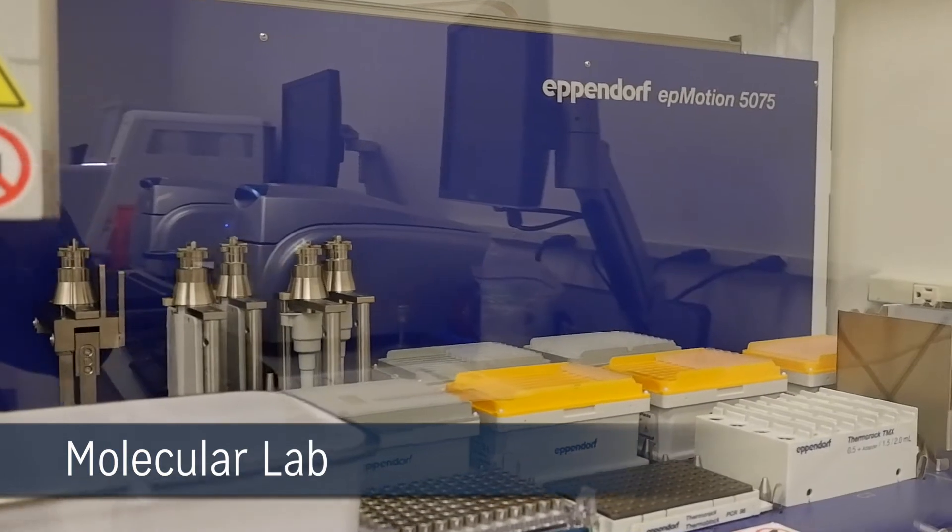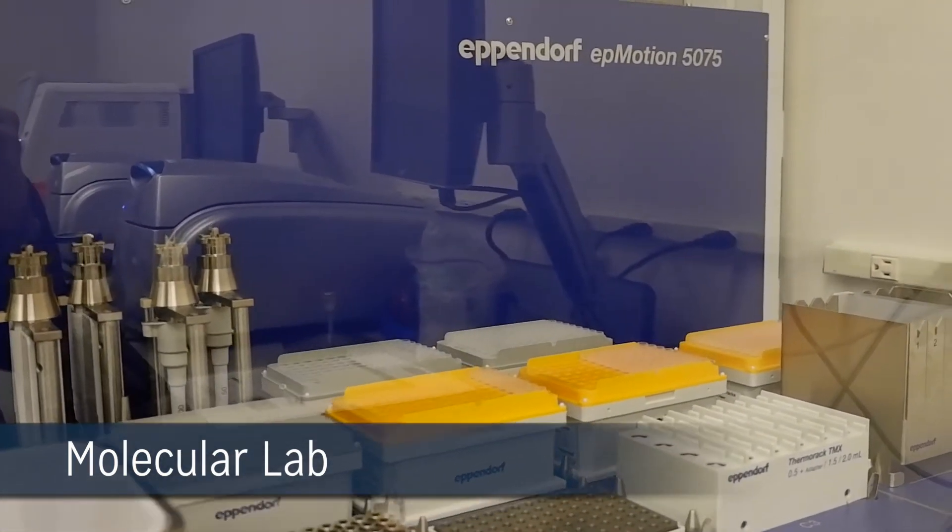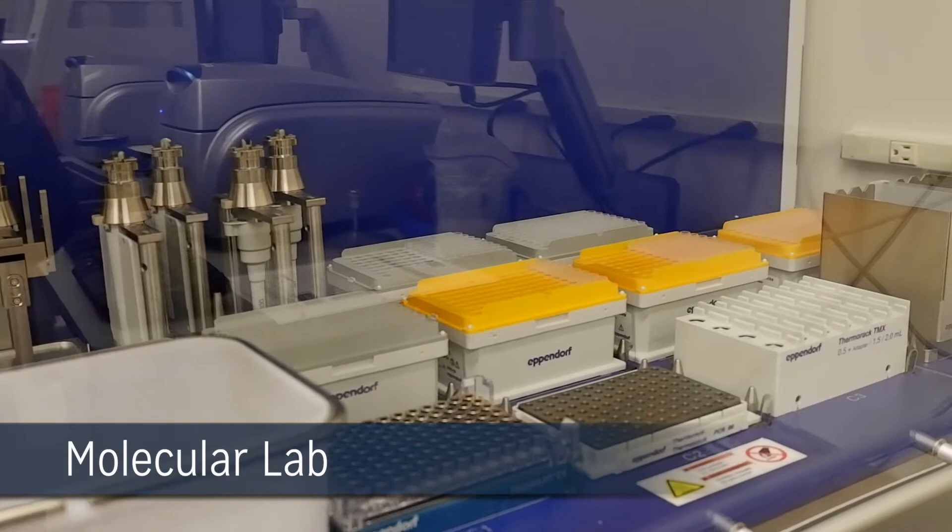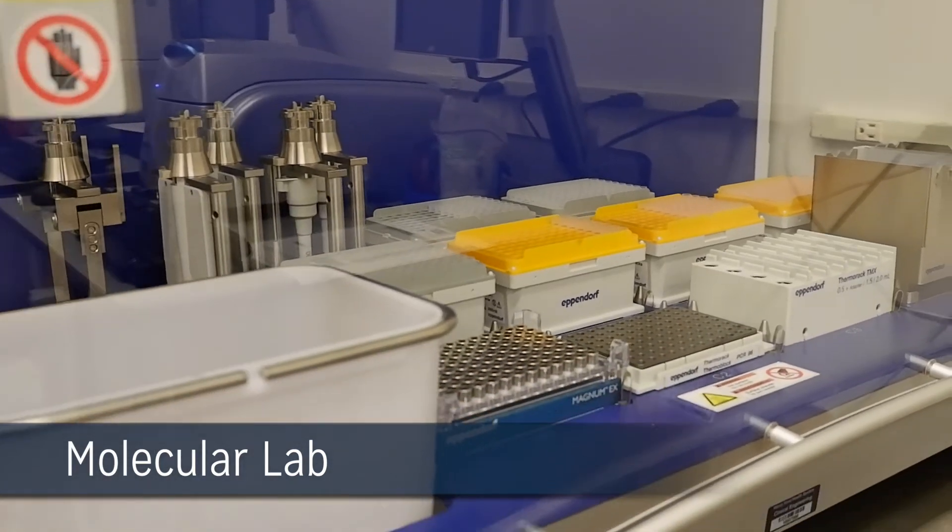Annually, the laboratory completes over 400 tests for mutations and fusions on lung cancer patients alone. On a monthly basis, approximately 50 bone marrow specimens are processed.